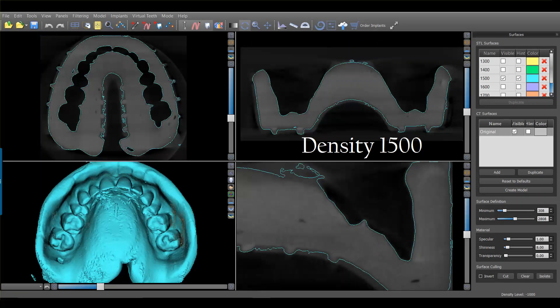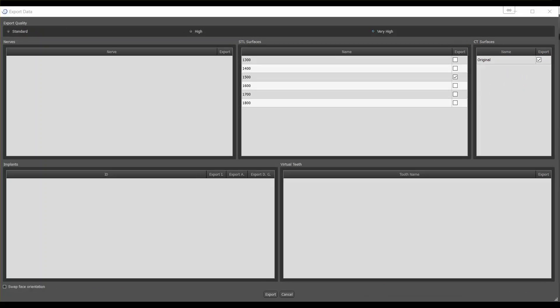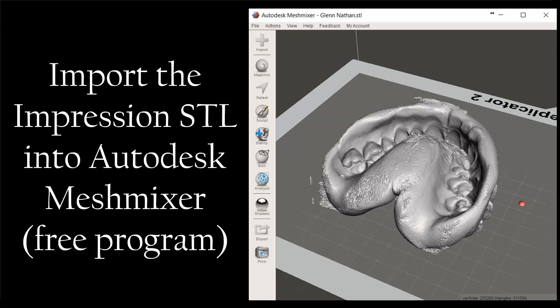At density 1500 we've got a nice 3D rendering in the bottom left and can see the model outlines in all the other windows. At this point we're going to click File, go down to Export Data, and export the 3D rendering — that STL model we created. The only thing to check is that the STL model was created at the density that's best for your machine. I'd also suggest setting your export quality to Very High. Save that to wherever you want on your computer, and the next step is to use a totally different program.